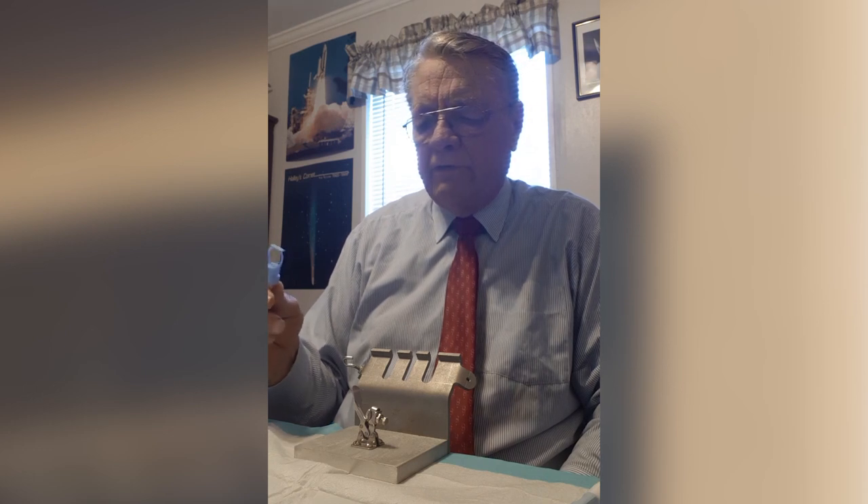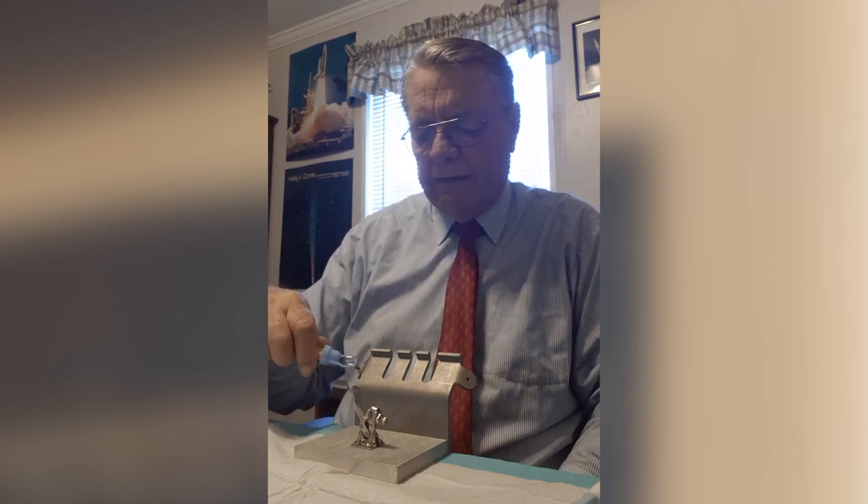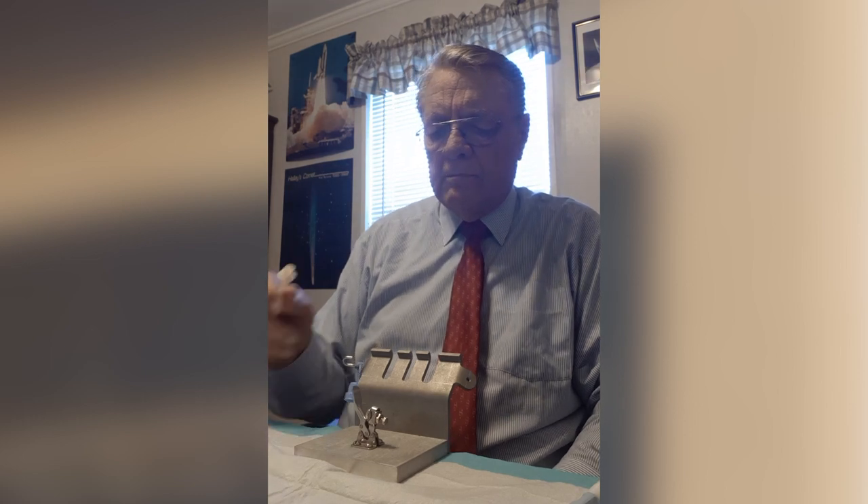This is the line coming from the cycler. We have to remove the cap, so place it there, put your hand on the table and pull. The cap comes off — place that right here and it's held securely.